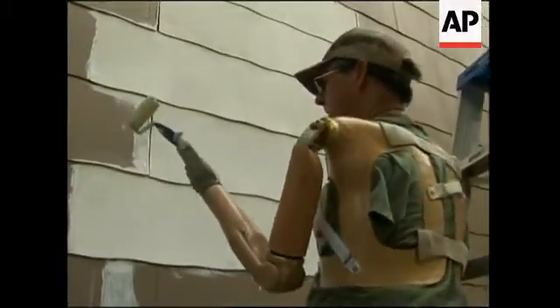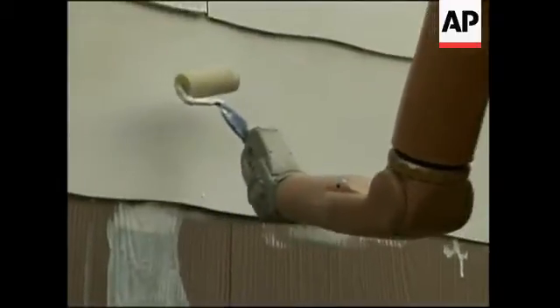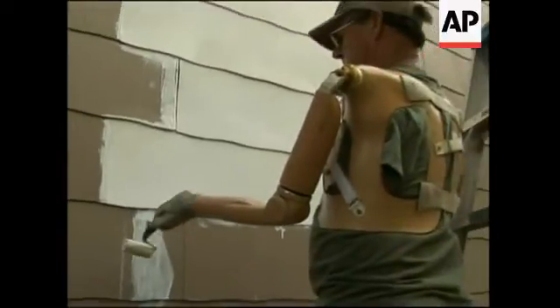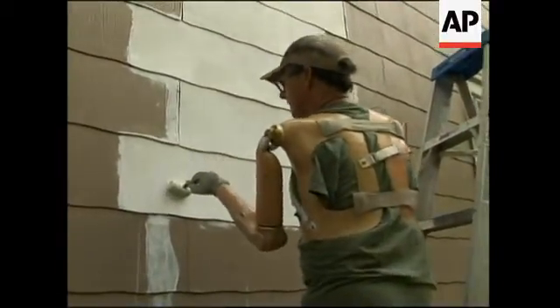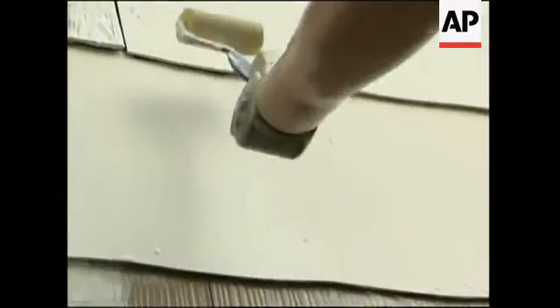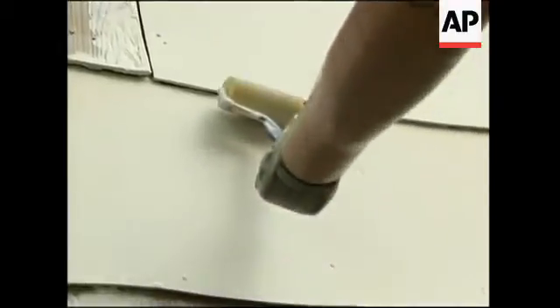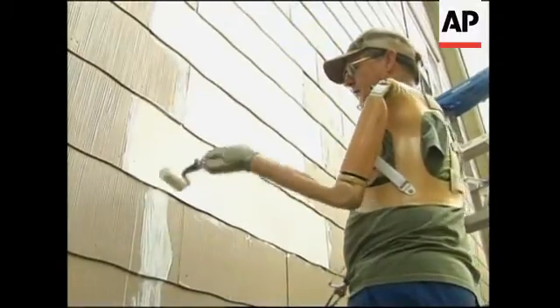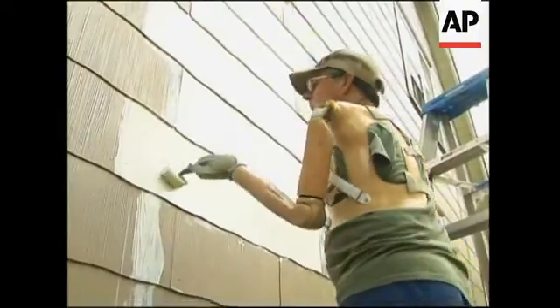Body English. And of course if you needed to change it to a different position, you could. Reaching up high — you have to set the shoulder to the different places. The arm, you can't just roll up and down, because you get too much involuntary motion out of it. That's a big achievement right there, being able to go around like so when you come up, because you get up further up like so.